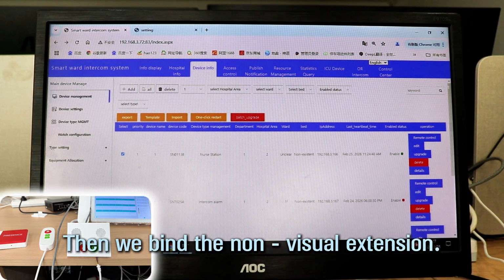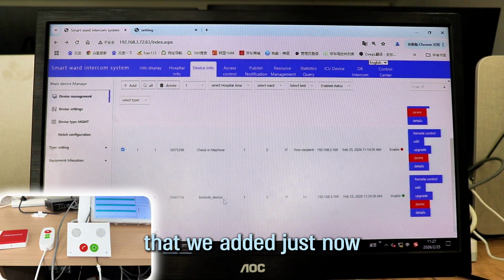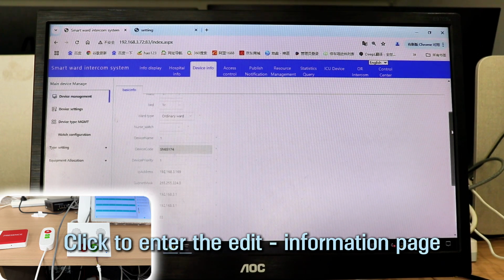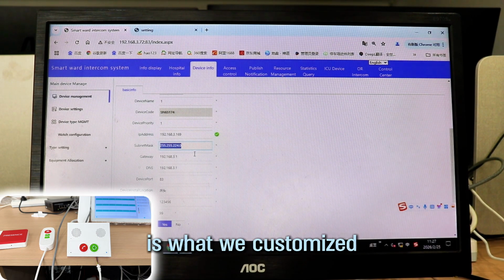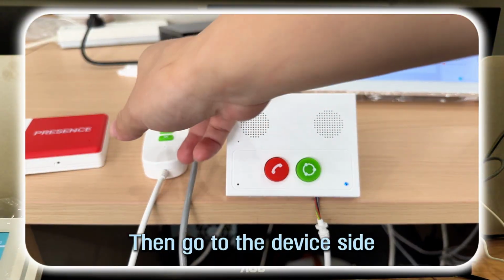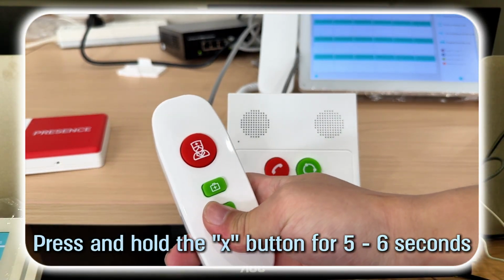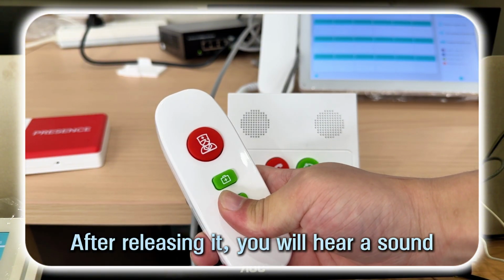Then we bind the non-visual extension. Select the information that we added just now. Click to enter the Edit Information page and view the detailed information. All the information here is what we customized, edited, and added just now. Then go to the device side, press and hold the X button for 5 to 6 seconds. After releasing it, you will hear a sound.